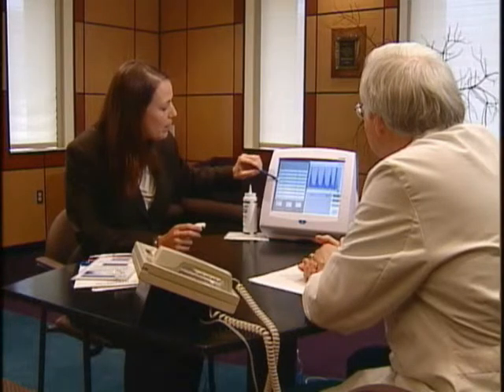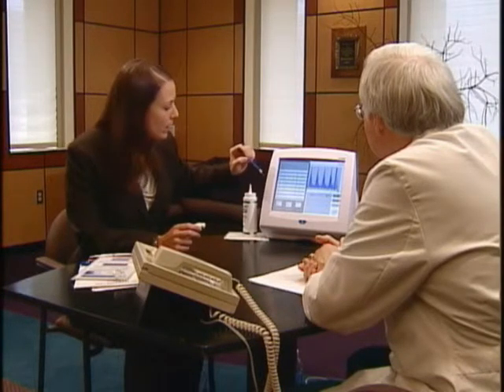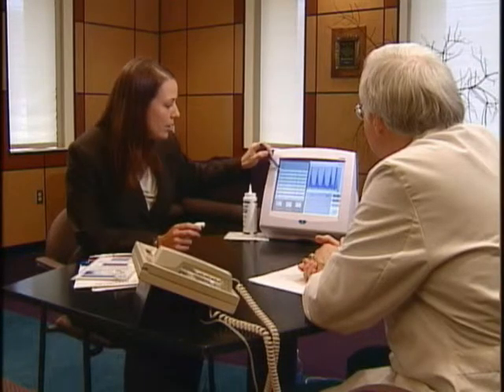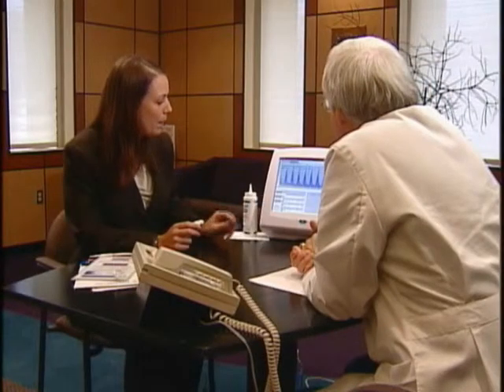And all the parameters above the line will be included in the display. If, for example, you want cardiac index, you just need to move it up into that group. When you're happy with that, okay. So now the display is customized for your use. If you're using it in pediatrics, for example, sometimes they're more interested in index measures and they'll put those on their display.